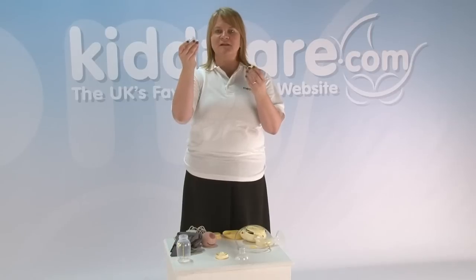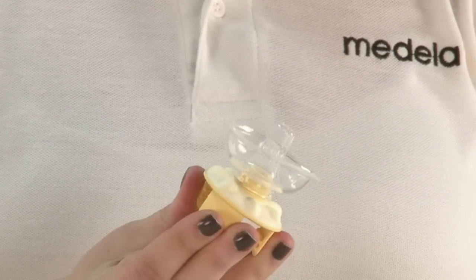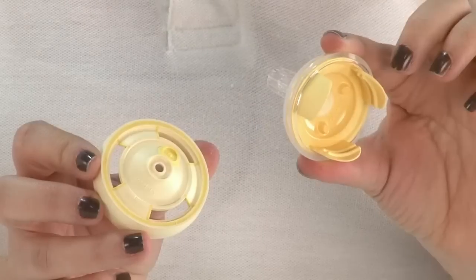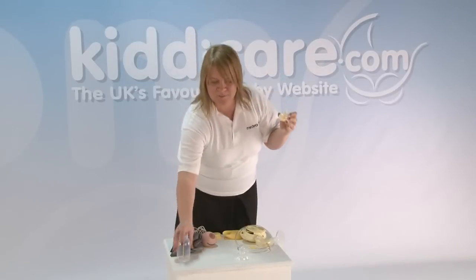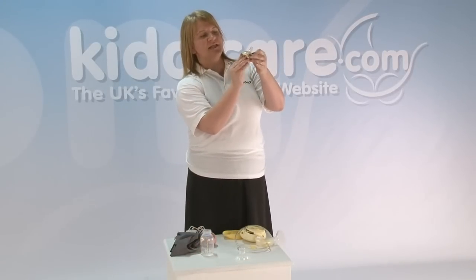To put it back together, take the silicone — once it's nice and clean and thoroughly washed — and you can press here without touching the piece that's going to be in the baby's mouth, and push that onto the part with the bumps. Flick down the edges of the silicone so they fit underneath the ridge, and you'll notice there are three prongs underneath and this part has three holes, so you just push those together. Then the Calma is ready to either be fitted onto the bottle or have its protective lid put on for transport.